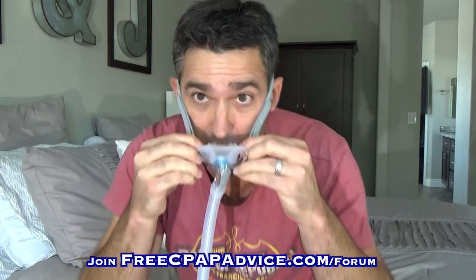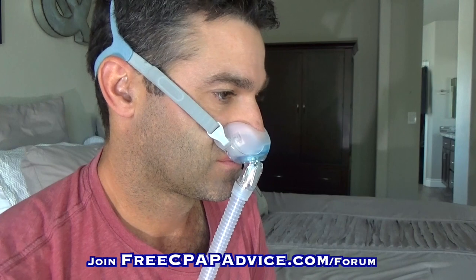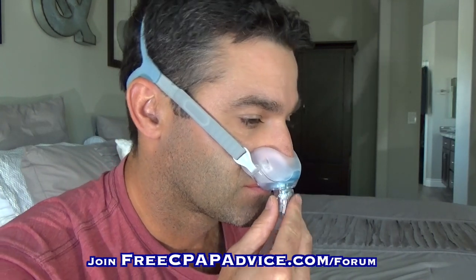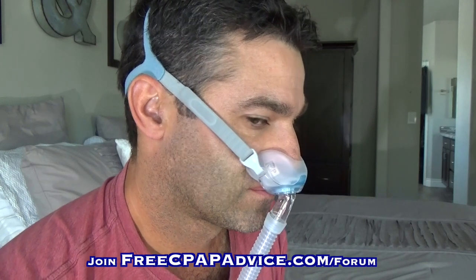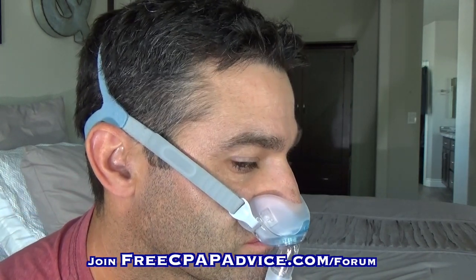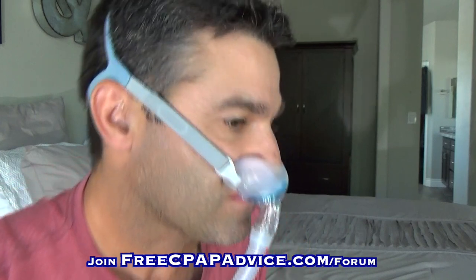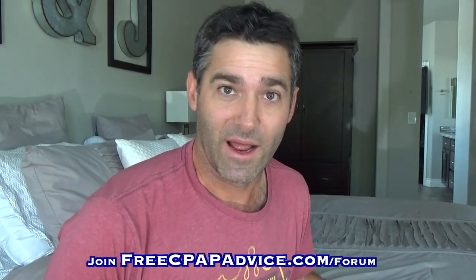I'm going to do a quick sound test with this, with the diffuser, so you have something to compare it to. You open these up, put them in your nostrils. I'll get a side view so you can hear it better. I'm going to hold my breath so you can hear just the air flowing through — this is without the diffuser. And now I'll put it on and do it with the diffuser. You can tell the diffuser does actually quiet it down quite a bit, but it's still quiet even without it.